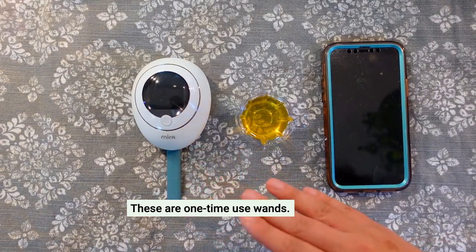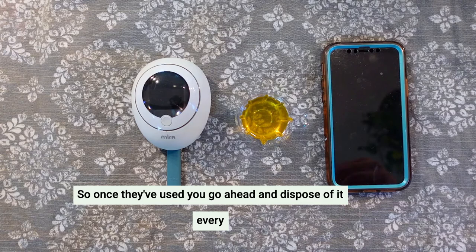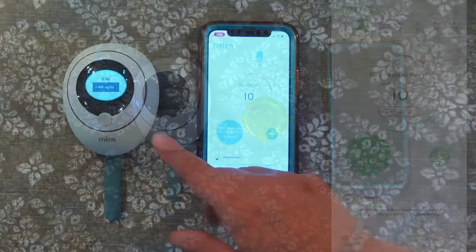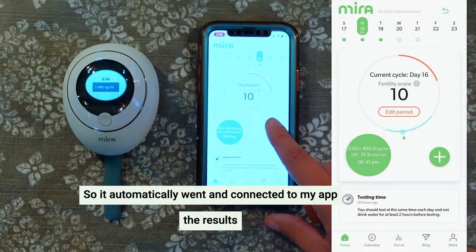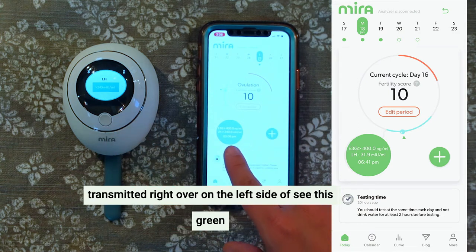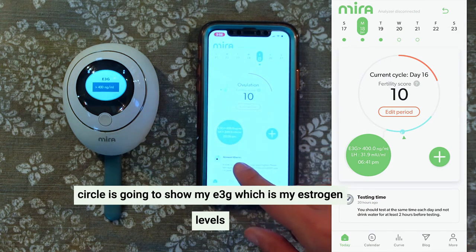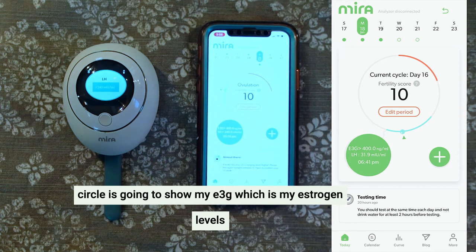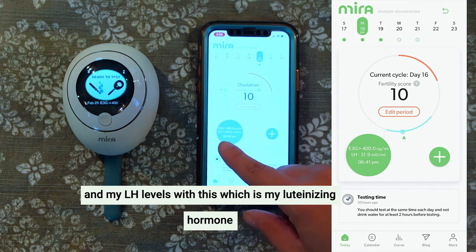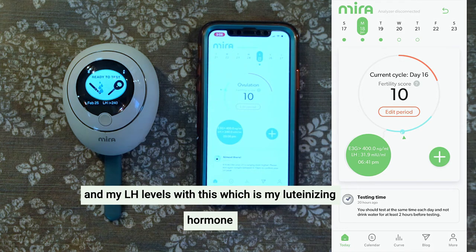It takes 16 minutes to fully read everything and check all the hormones within the urine. These are one-time use wands, so once they've been used, go ahead and dispose of it — every time you test, you want a new wand. It automatically connected to my app and the results transmitted right over. On the left side, you'll see a green circle showing my E3G, which is my estrogen levels, and my LH levels, which is my luteinizing hormone levels.